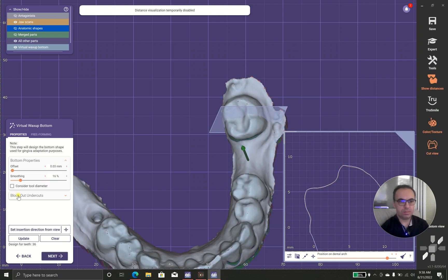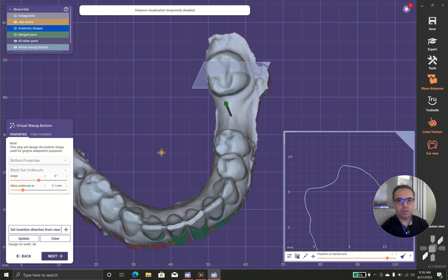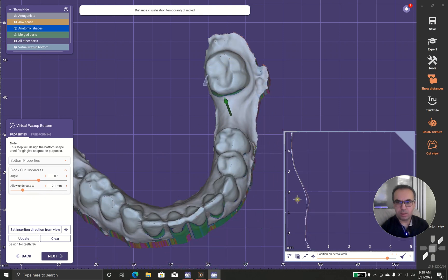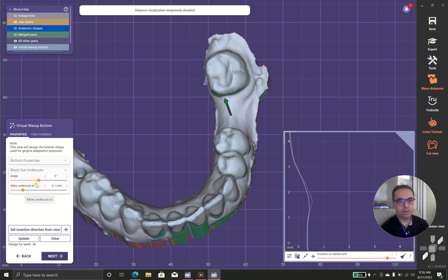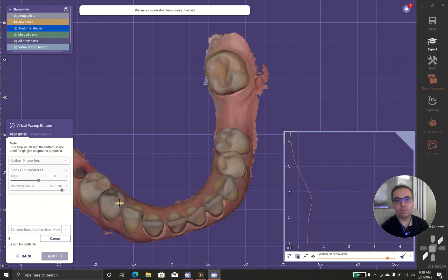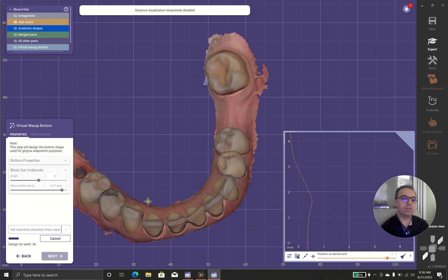Okay, it's good. And actually here we have undercut. In case I allow undercuts to a bigger number, it will go inside the undercuts. It means more retention and at the same time it means we have problems with taking things off.